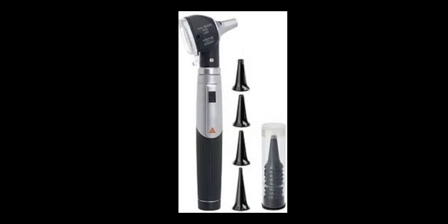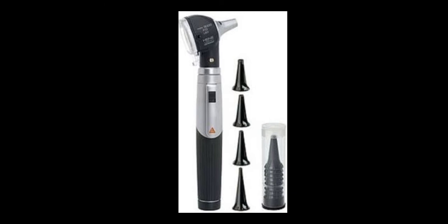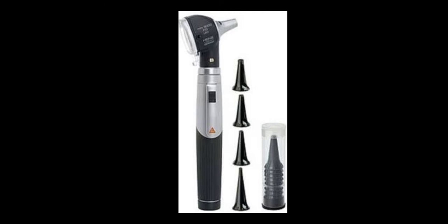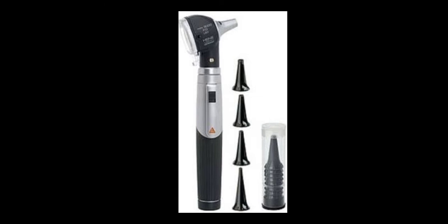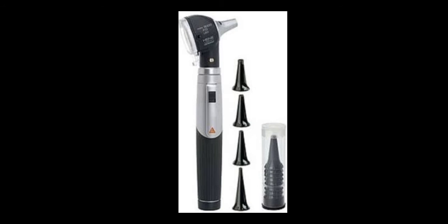Next is the otoscope. A scope is a type of equipment which uses light to see body parts. The otoscope is related to the ear — this instrument uses light to examine the ear, including the pinna and through to the eardrum. So this is the otoscope.